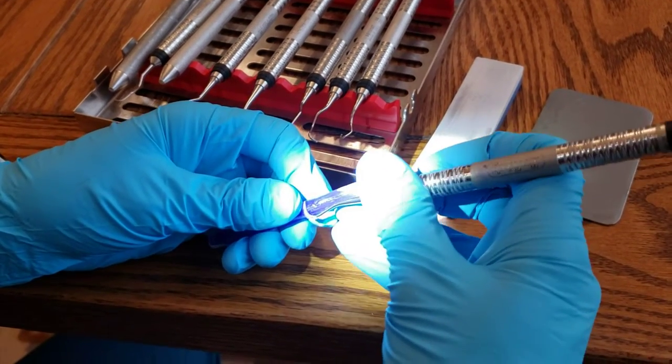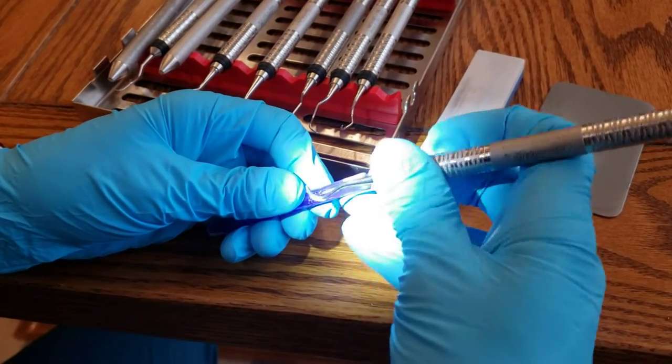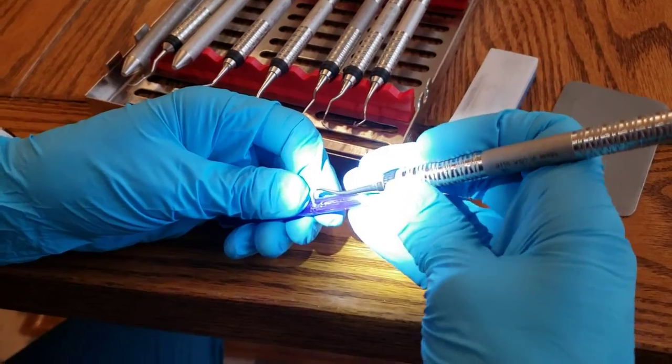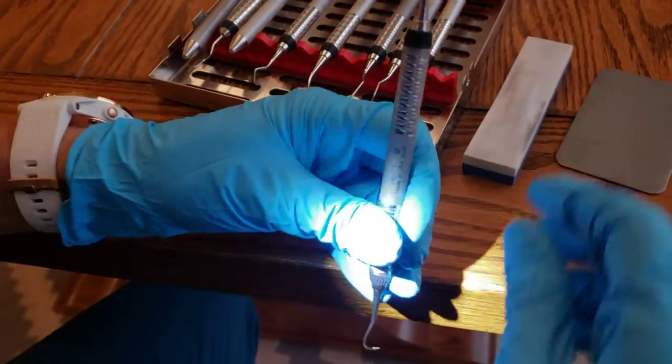If it grabs right away, then we know it's sharp. This side, I have sharpened, so I can tell that we've got a little bit more of a grab. So I'm going to sharpen this side right here.